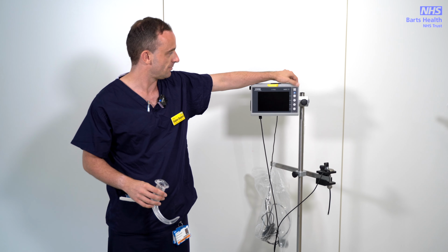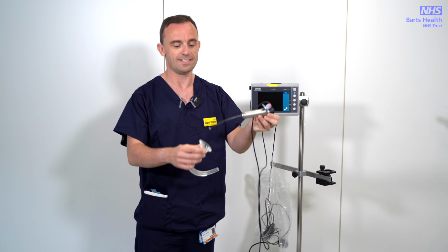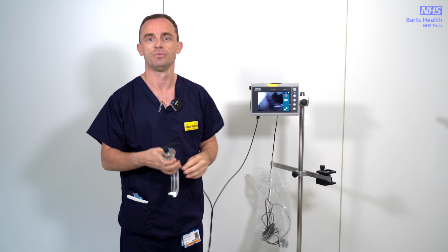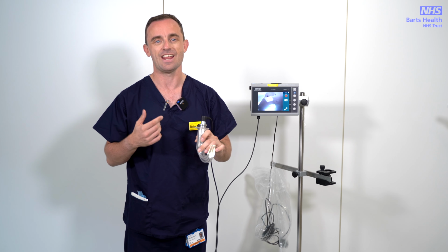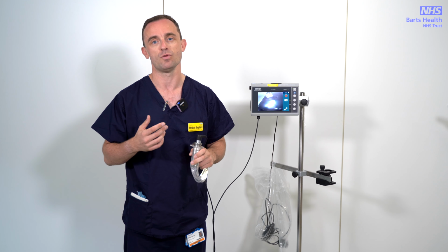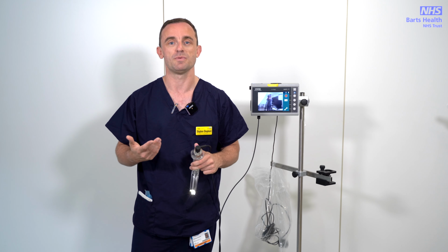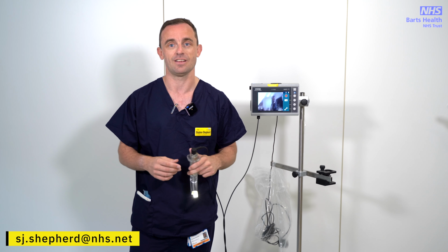You turn it on up here. Again, it comes on pretty quickly, and this is your insert. This needs to be lined up so that the posterior bit is going to lie towards the back, and you'll see it clicks in like that and you get a view. It's used like a normal laryngoscope: in, rotate, and again, you can use bougies or other stylets or introducers with this to get better access to the trachea. We use this quite a lot on this site, not only for standard intubations, but where there's a concern about a patient's COVID status, we would advocate video laryngoscopy in the first instance to reduce operator exposure to the virus, but also increase the chances of successful first pass. Again, any questions, come talk to me.